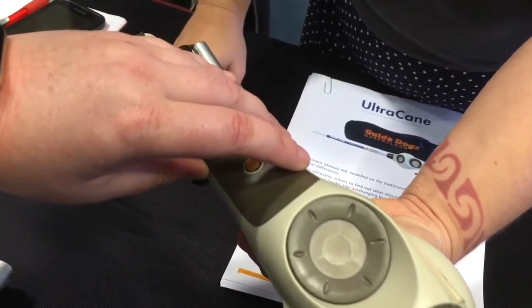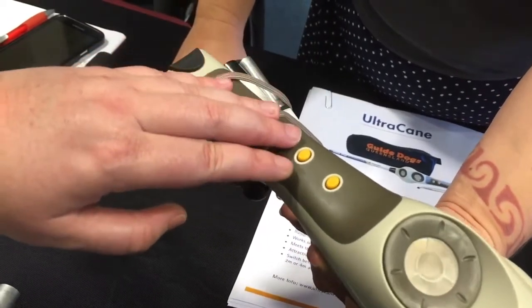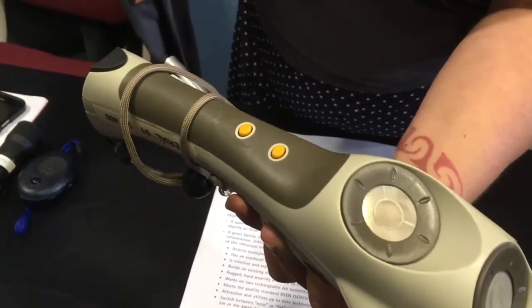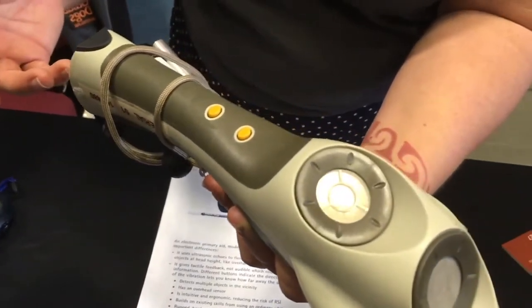Using them on the pavement too much can make you go numb. The buttons are really quite powerful — they're such big bold buttons that people can actually hear them as they're walking, instead of just feeling the vibration.